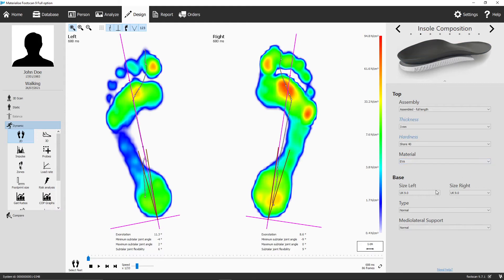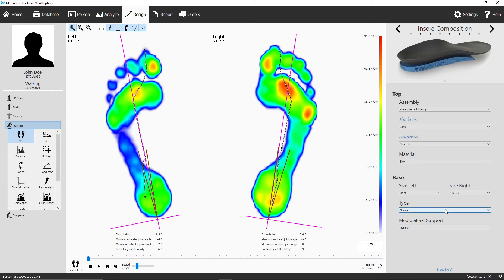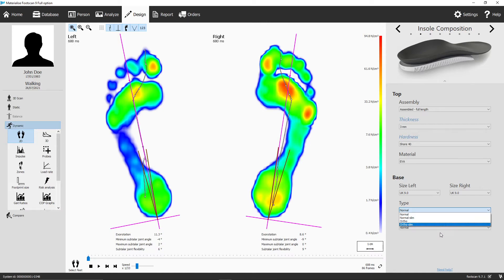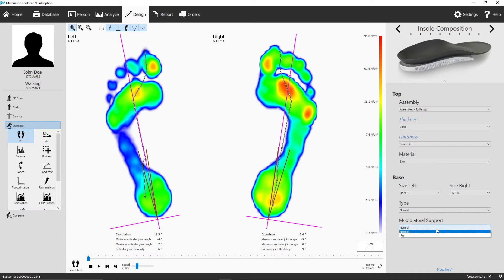In the lower part of the second panel, you can change the printed base's size for the left and the right side. Make sure to check the results of your sizing protocol for this. In the base type option, you can choose between the normal type or the more correcting ortho type, and decide whether you want to have the standard option or the newer slim fits version. You can also choose the medial lateral support — go for normal or select the high option if you want to significantly increase the amount of correction.